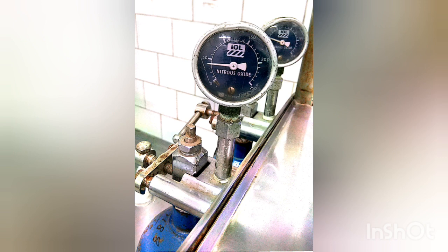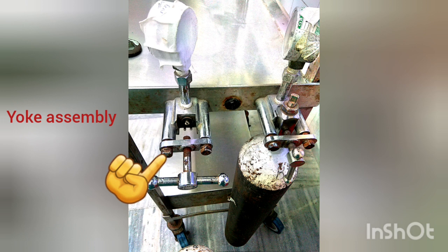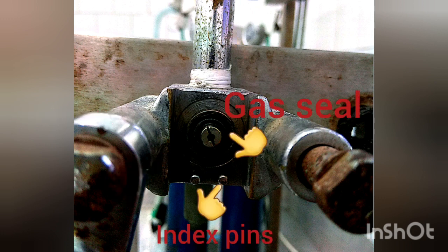Coming to the yoke assembly, it is a portion of the machine at which cylinders get fitted. It has got index pins, a gas seal, and a filter.